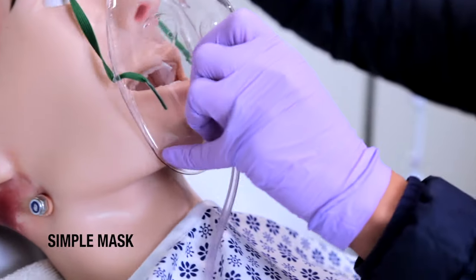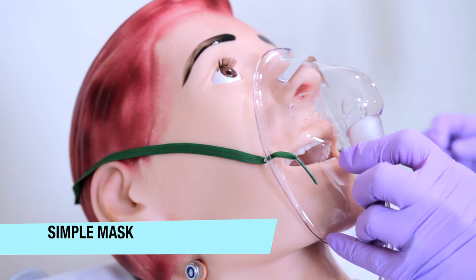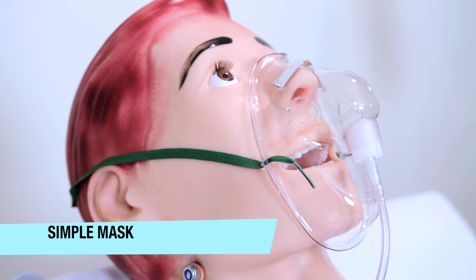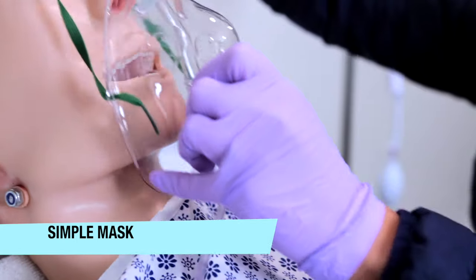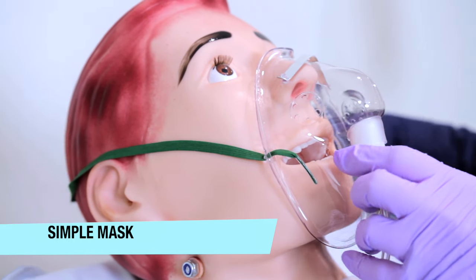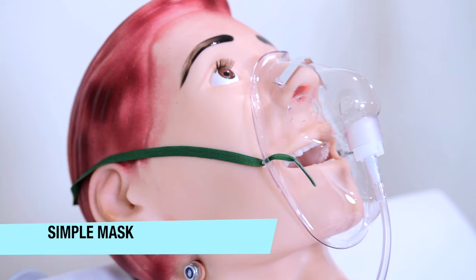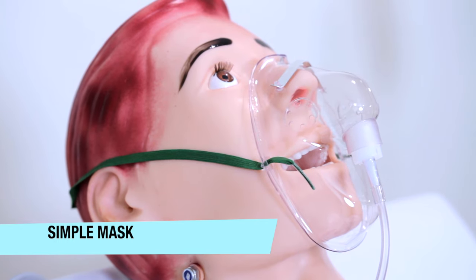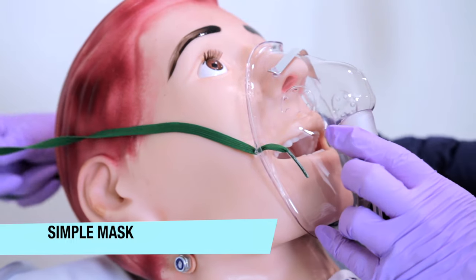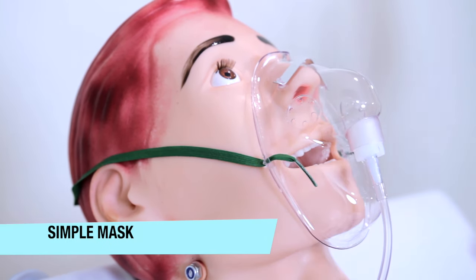This is a simple mask. A simple mask can deliver 35% to 50% oxygen with an appropriate flow rate of about 6 to 10 liters per minute. I call this your quick go-to oxygen for patients with sudden chest pain, dizziness, or patients right out of surgery from the post-anesthesia care unit, what we call PACU. A key tip: for patients with sunken cheeks or on the slimmer side, tape some gauze pads to the mask over the cheeks to ensure an airtight seal.